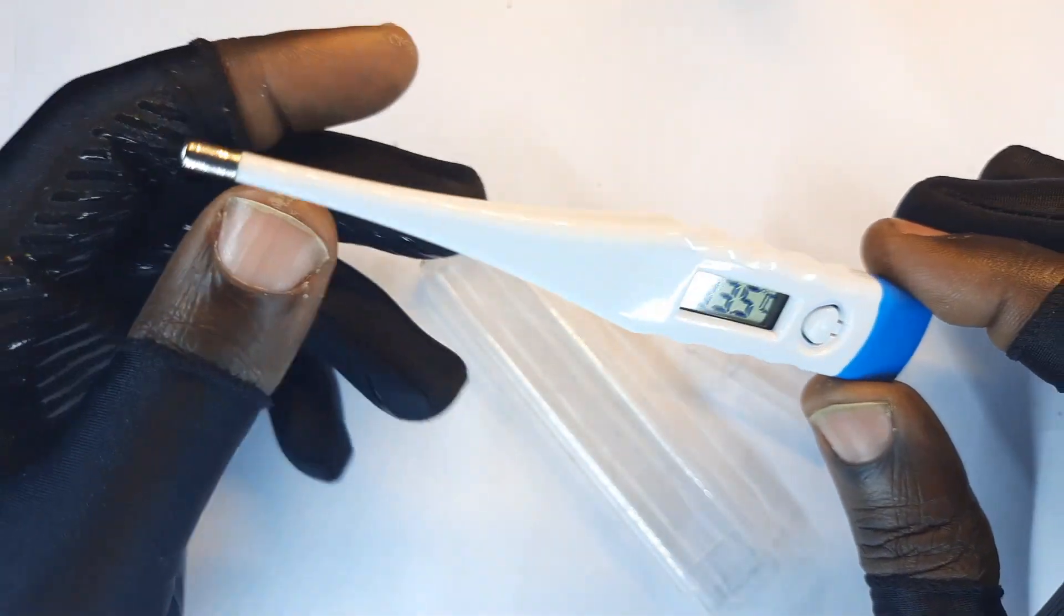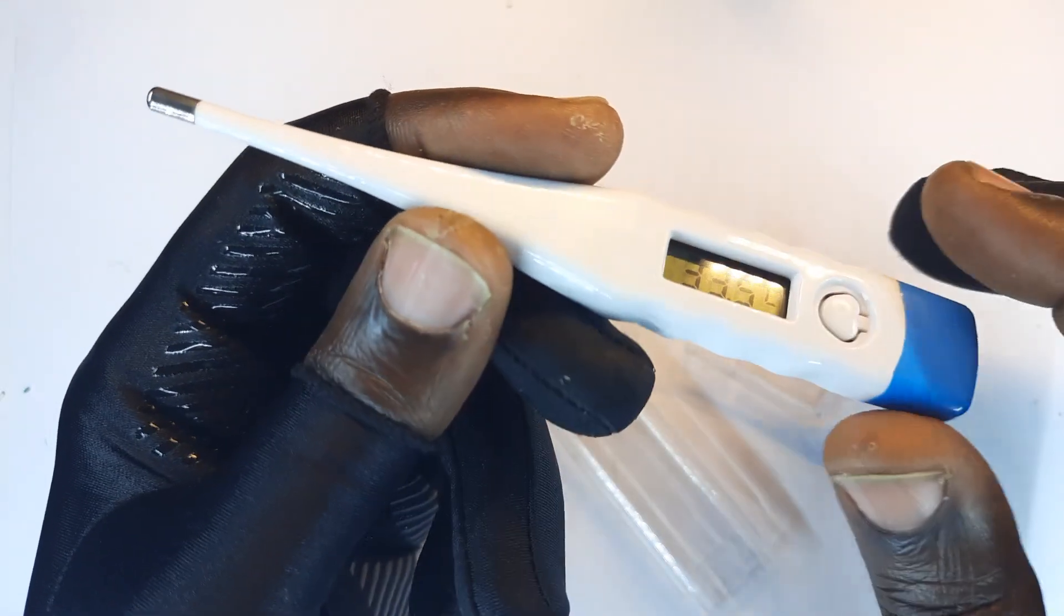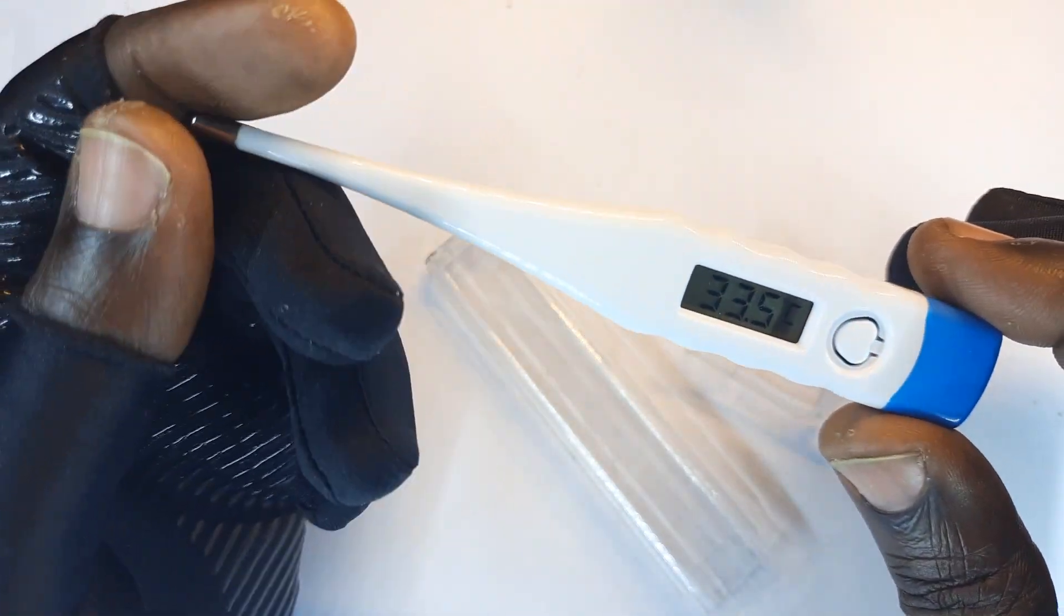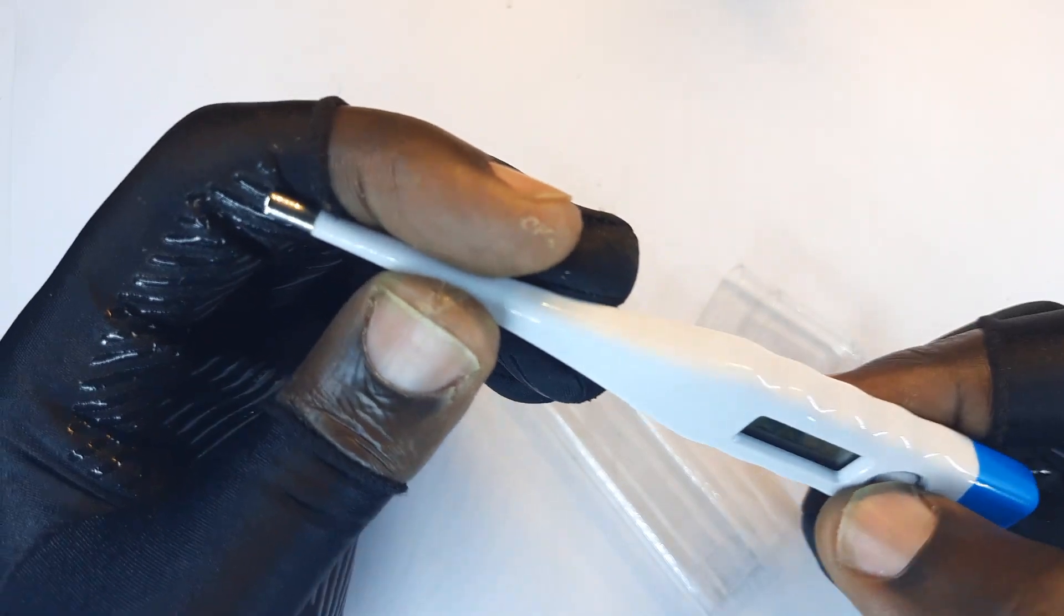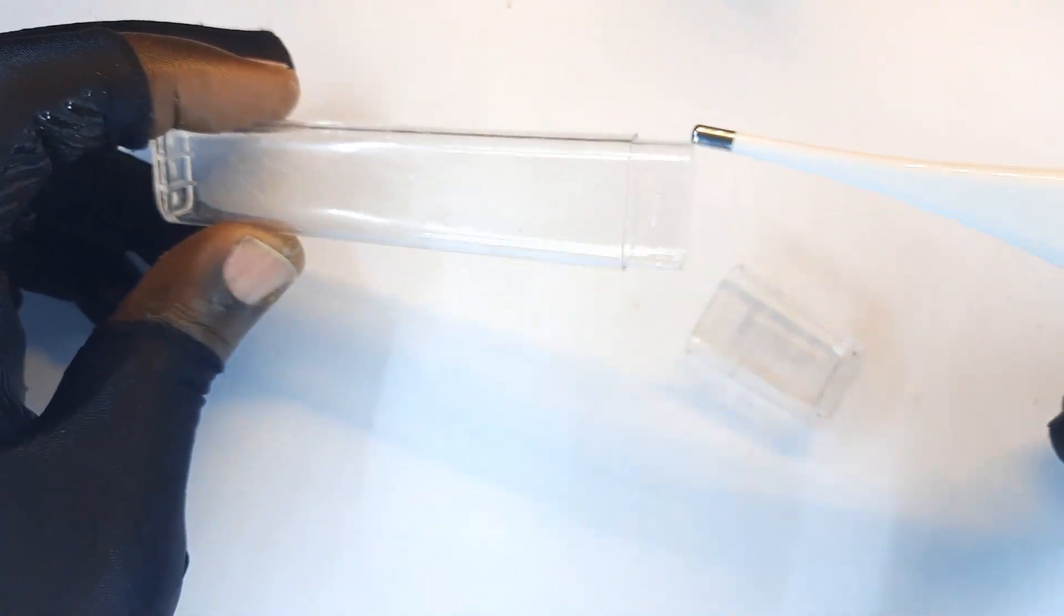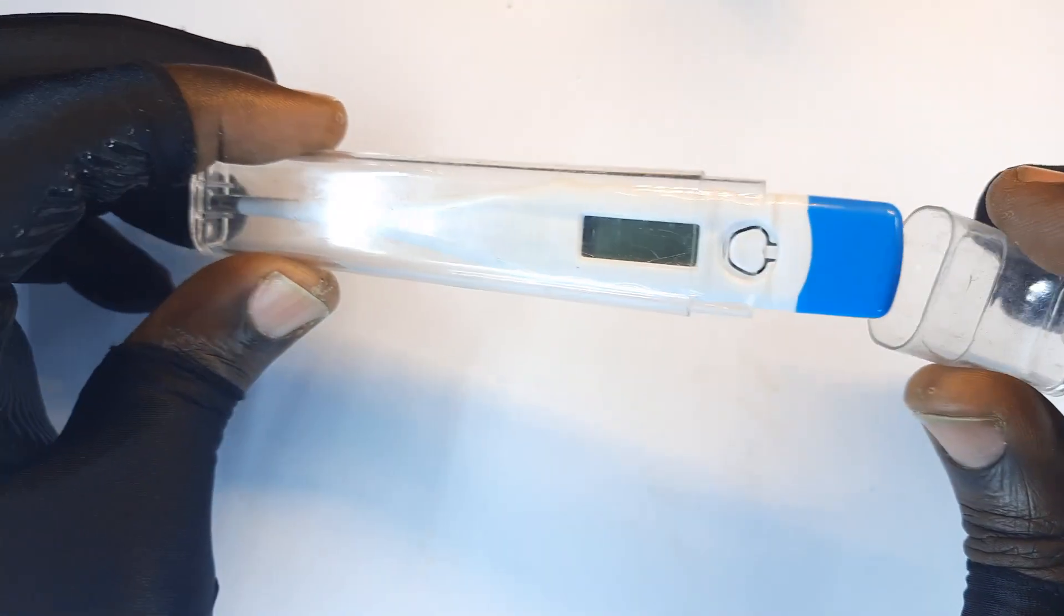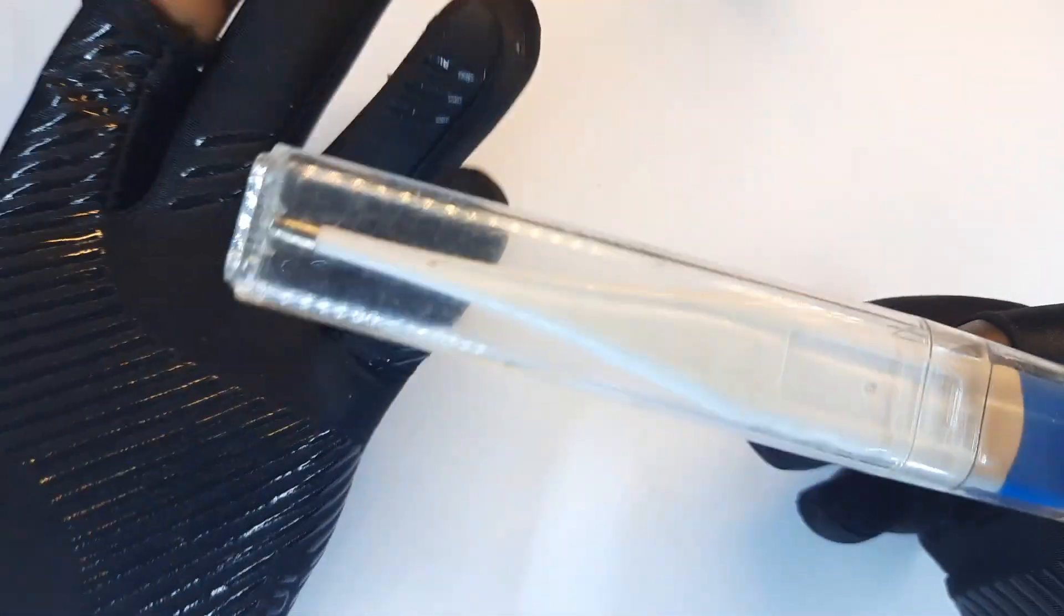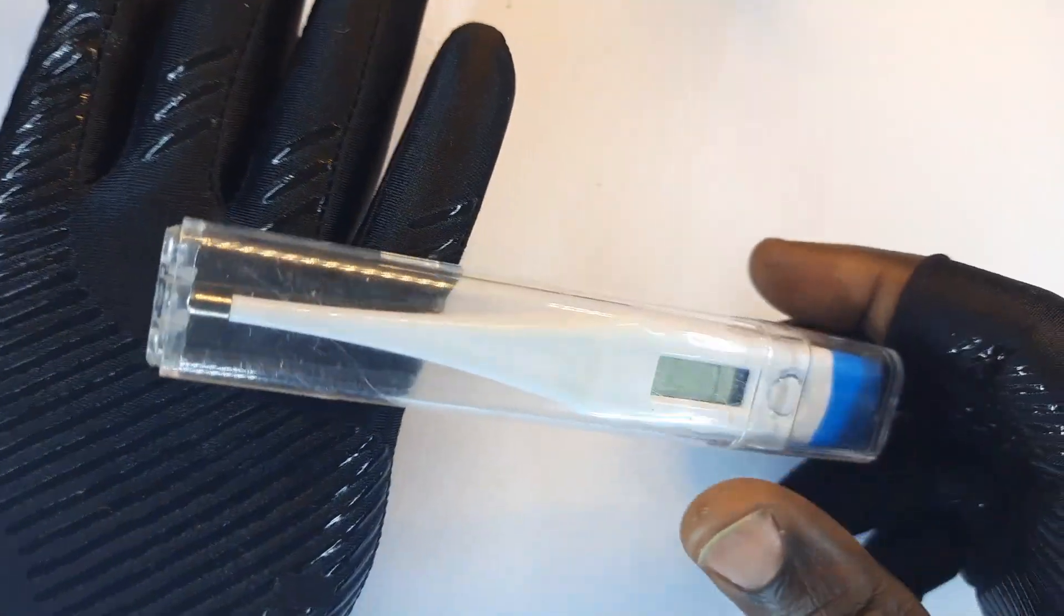But anyway, it's a beautiful tool and I'm always glad that engineering is always taking solutions to another level and putting tools in the hands of even the smallest person in this world. In the past, you only could take your temperature when you're at hospital.